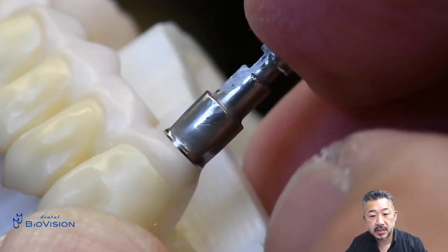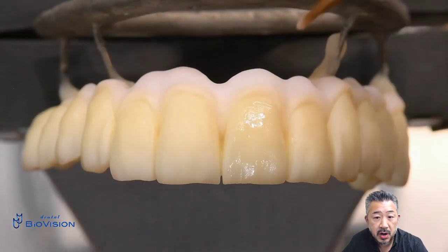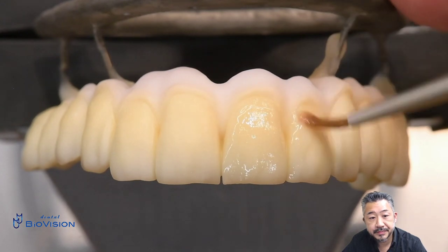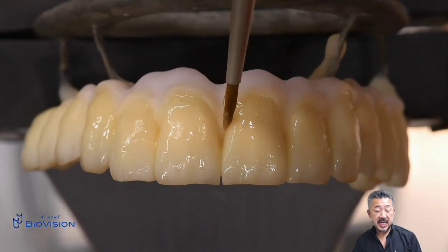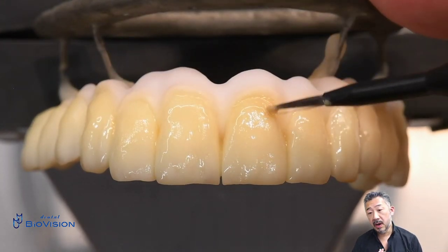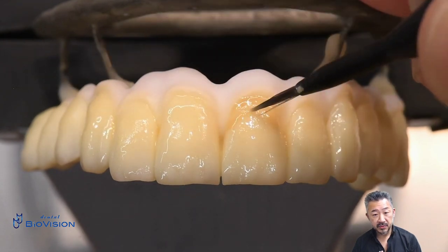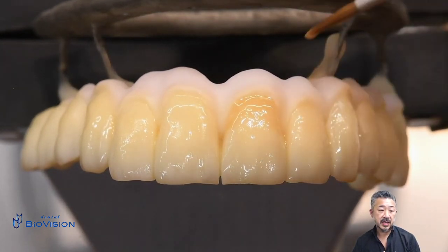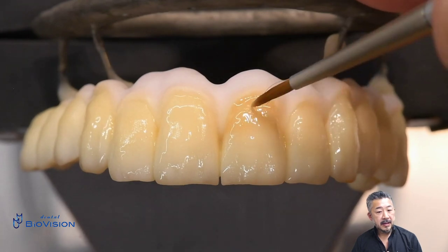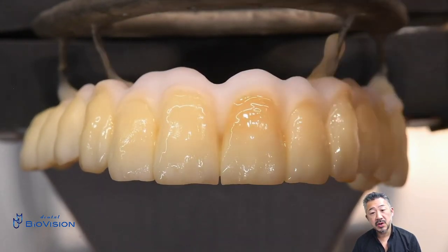Now let me show you how to stain after sintering. In my case I first apply a thin clear paste overall, then apply the base color from the cervical area to the incisal edge. It depends on how much color correction you want.